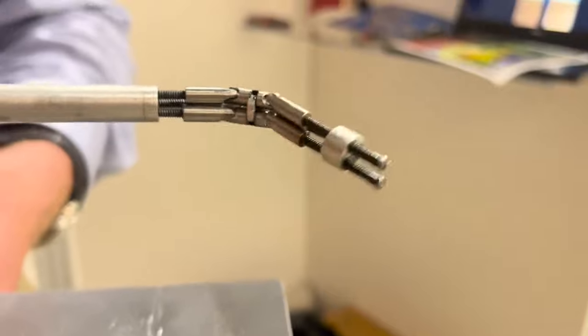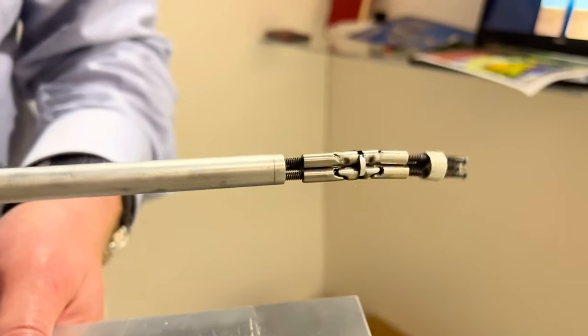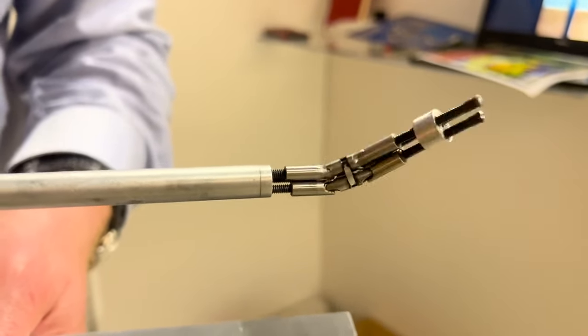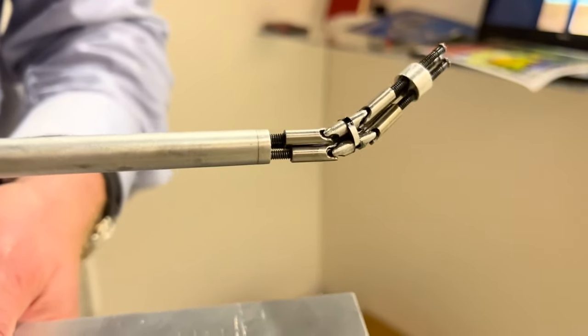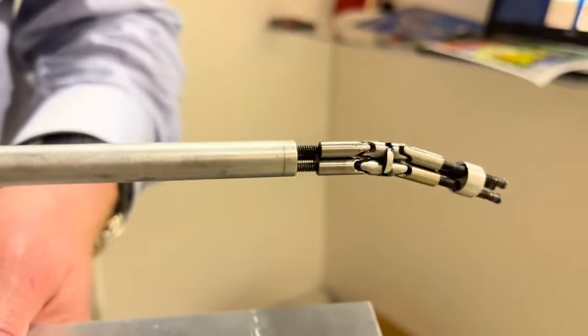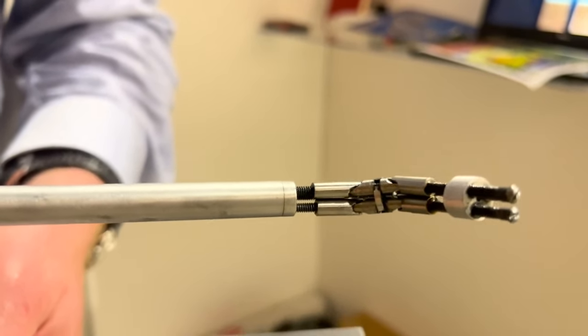And the disc is the one right in the middle. Yeah, exactly. And that allows it to bend at higher angles, because you see the lower half is identical to the upper half. That doubling of motion — it's like you've just duplicated, you photocopied the lower joint.